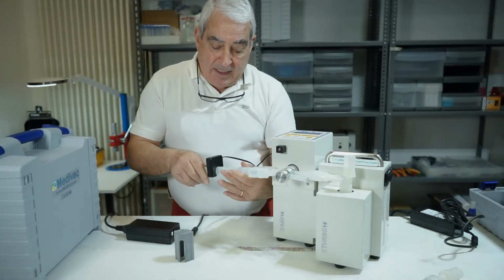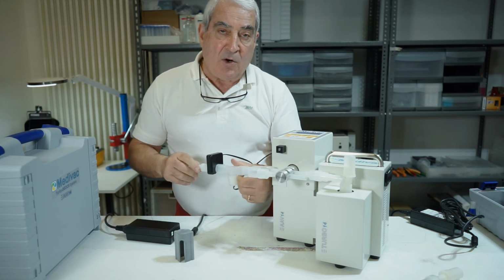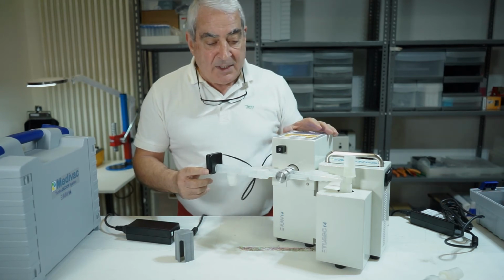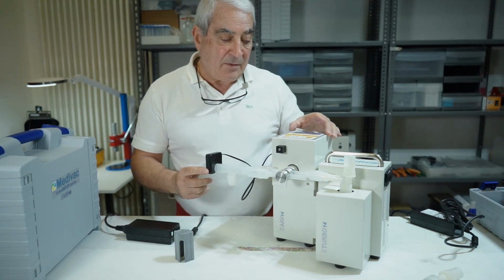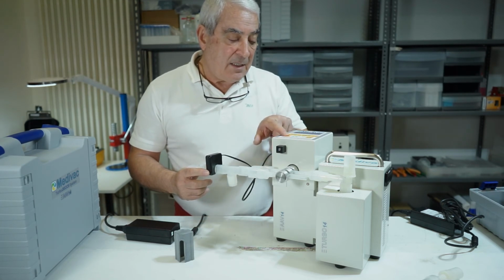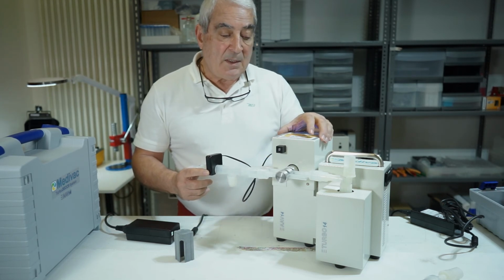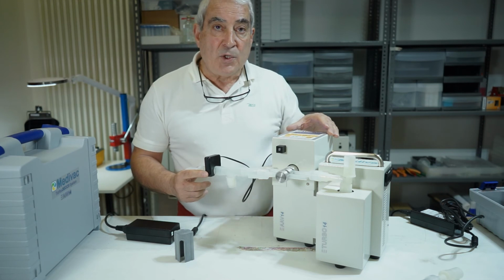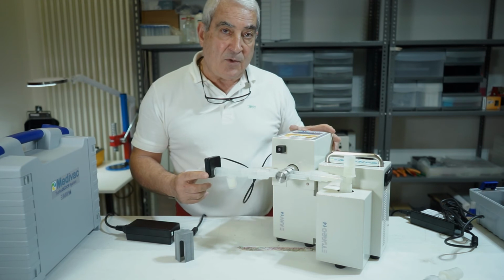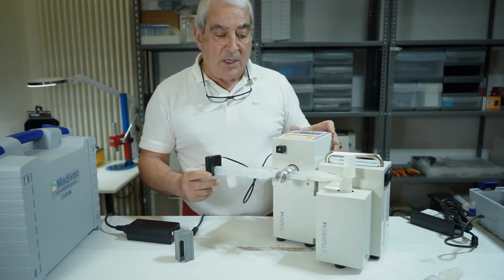This is a functional cycle which is maintained over time as long as it takes to collect the adequate sample necessary to carry out the investigation. By pressing the reset button, it restarts from zero. The instruction booklet for use is really clear and concise and permits using the device in the best way possible.